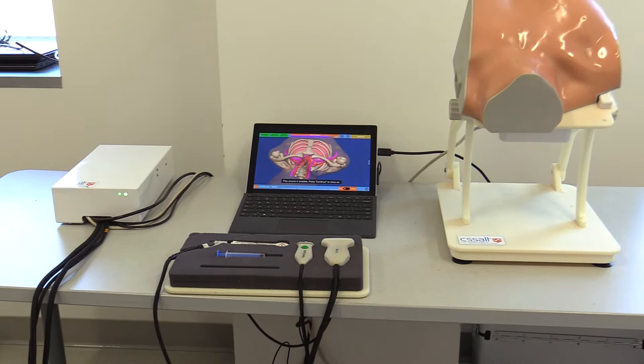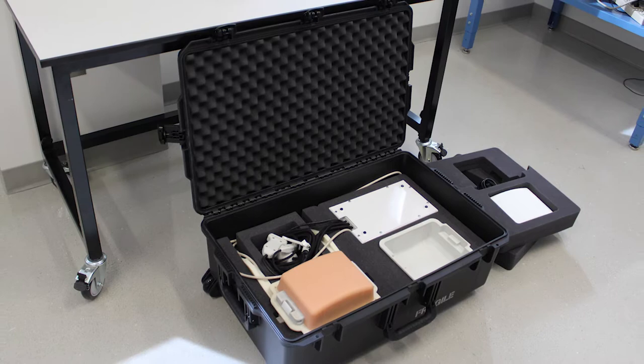This compact unit is dry, requires no fluids, and may be set up in five minutes from a padded case that meets checked airline luggage standards.